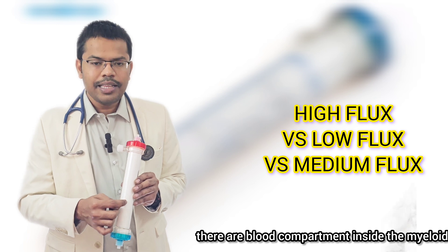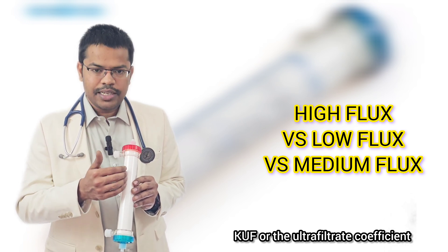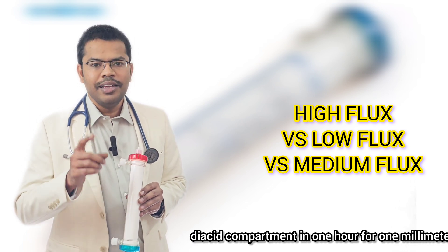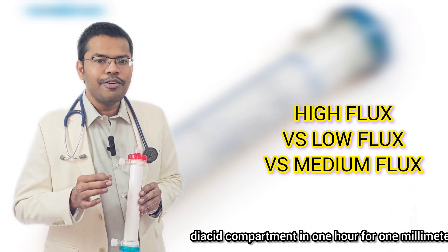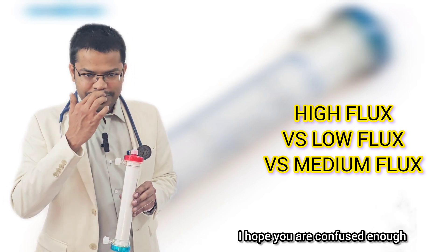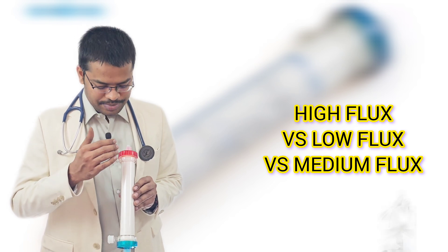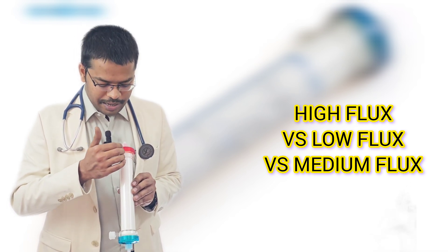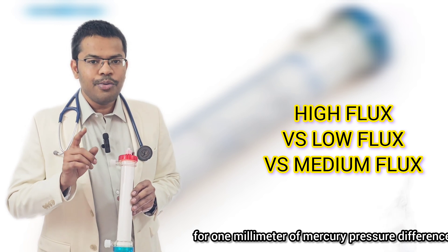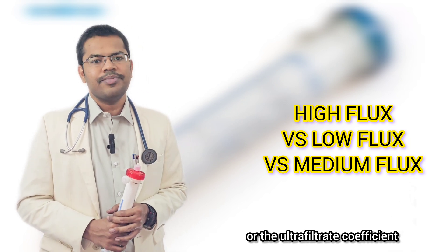Inside the micro-capillary is the blood compartment; outside is the dialysate compartment. KUF, or the ultrafiltration coefficient, is the amount of fluid that moves from the blood compartment to the dialysate compartment in one hour, for one millimeter of mercury pressure difference between these two compartments. That is called the KUF or ultrafiltration coefficient.